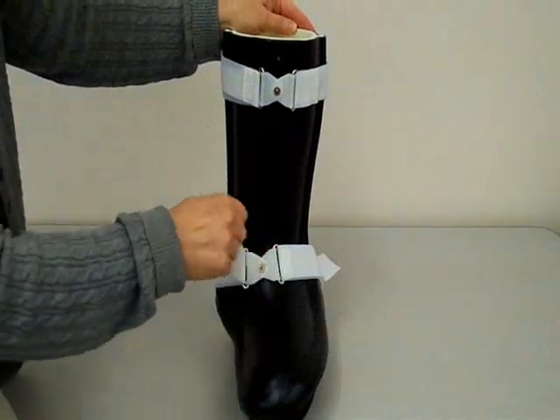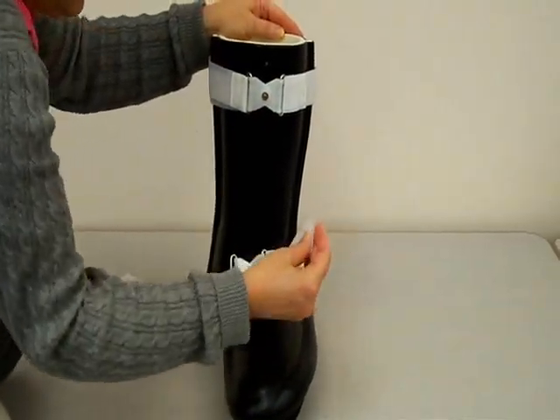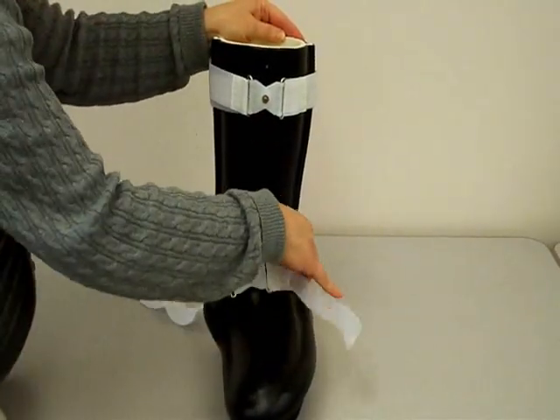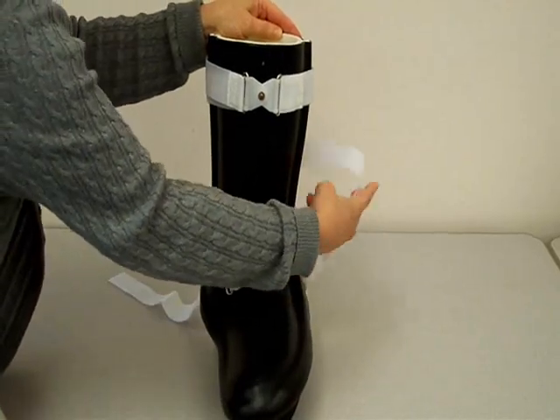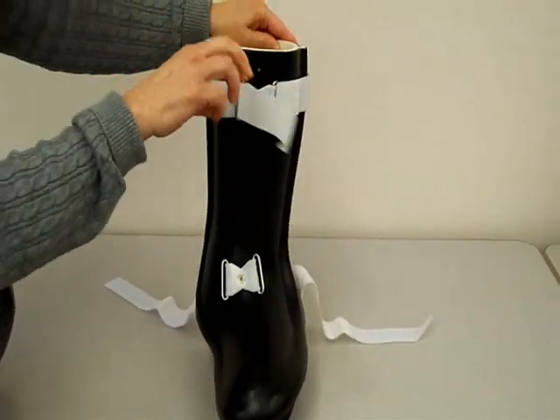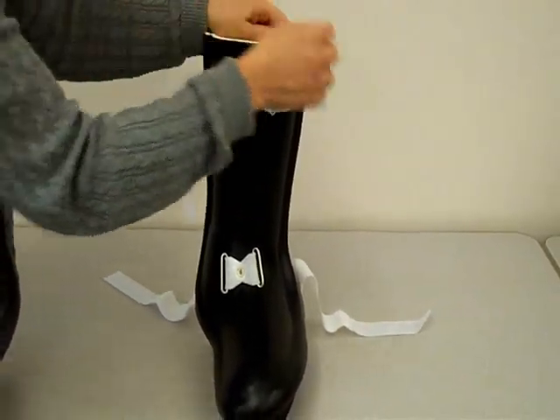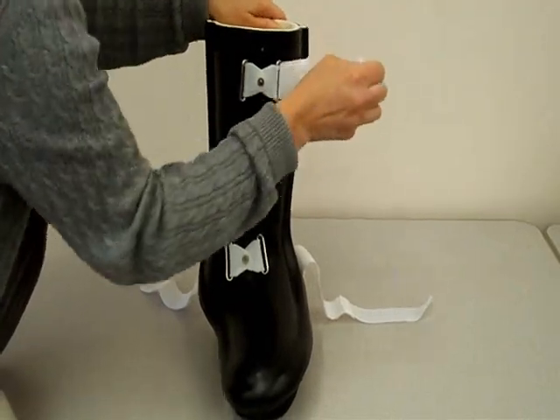This video shows how the bivalve AFO is taken apart. When it is separated, the patient puts the back part on, then the front part, then fastens the Velcro.